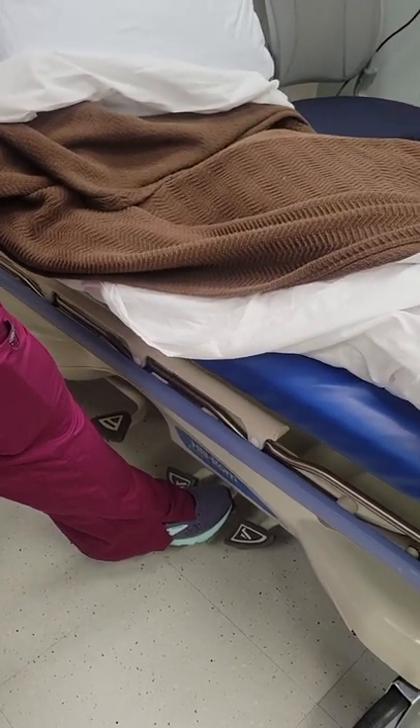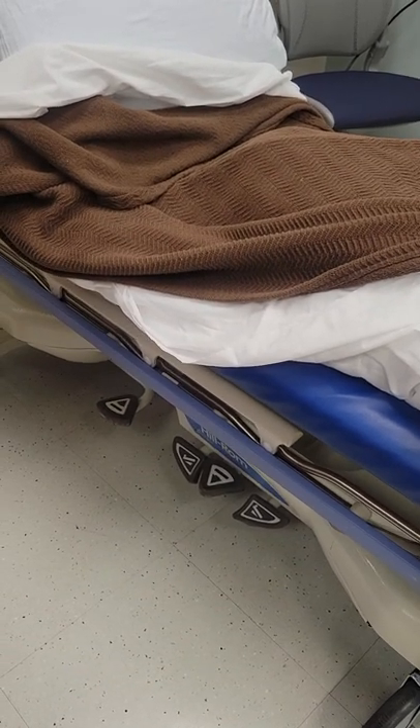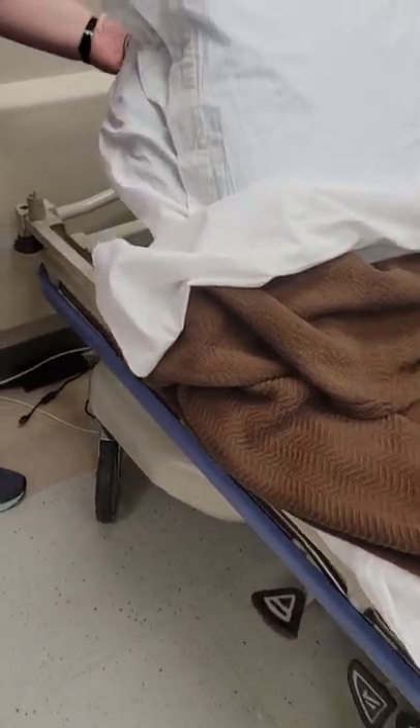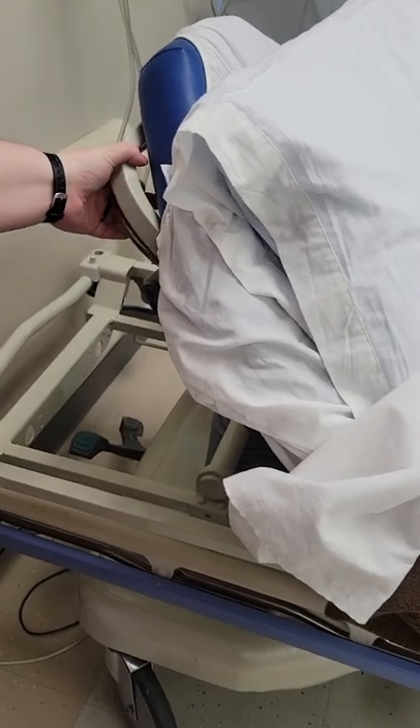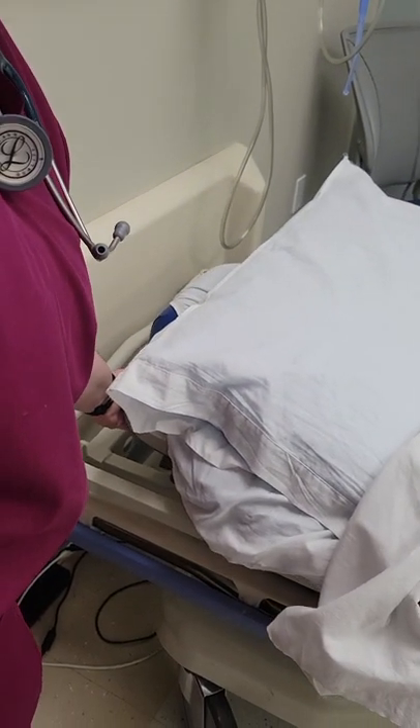All right, and that's the middle pedal. Here's the back down button. And then the head of the bed. Okay, that's one of the squeeze ones. Squeeze and release.